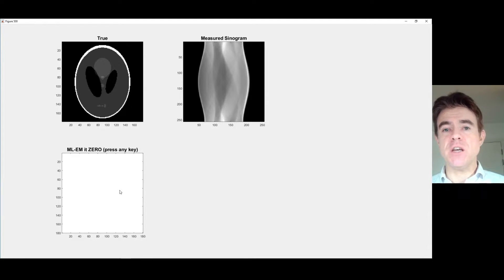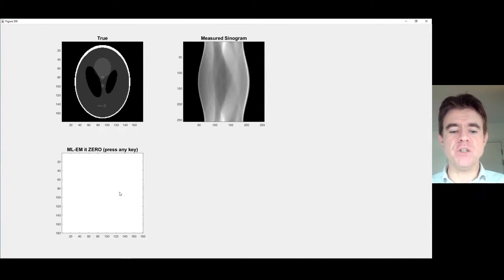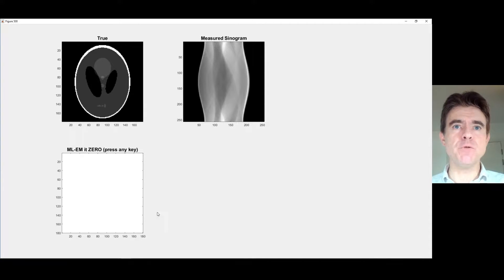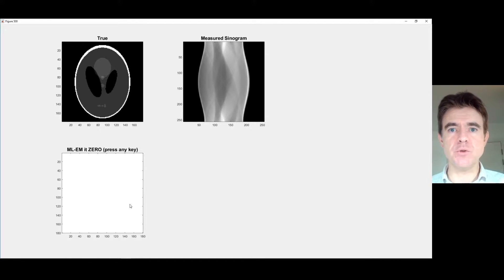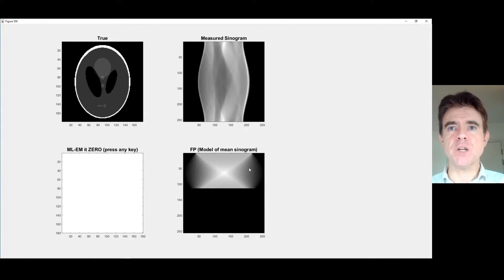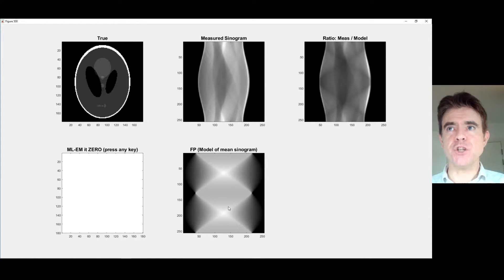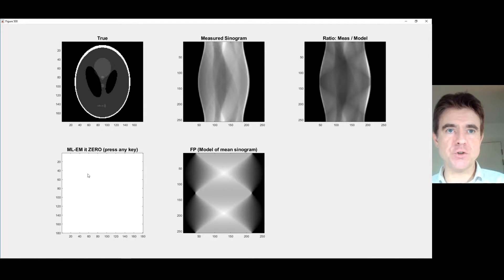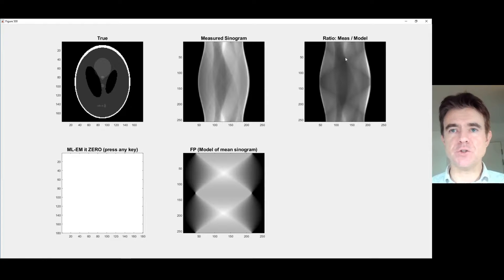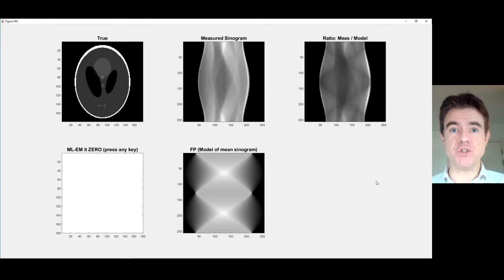Here I've got a zero iteration — in other words, just an initial guess of what that object was inside the scanner. We're going to forward model this and compare it to the actual measurement. I'm just going to do a Radon transform, a forward projection. We're just forward projecting that uniform image, and then comparing it to the measurement. Here's the measured sinogram divided by my forward projection of my uniform starting guess — that's the ratio in the top right corner here.